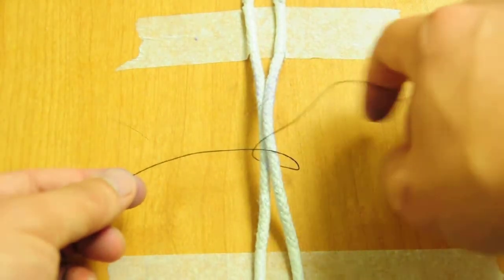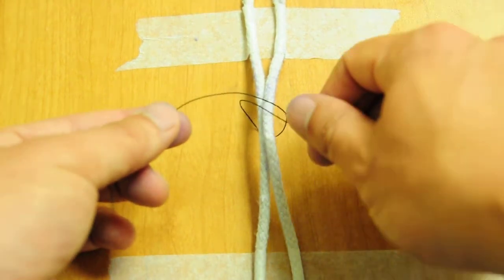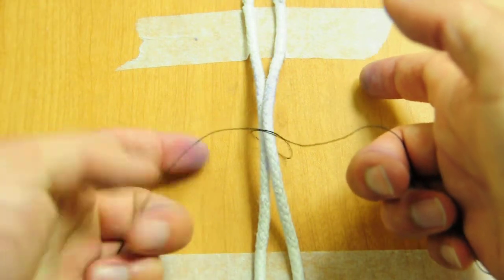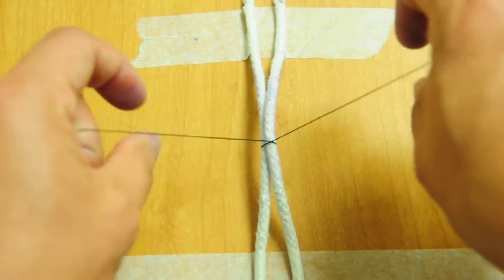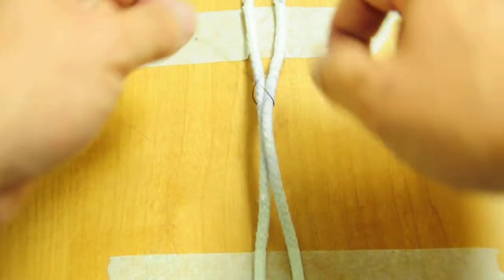Again, I'm going to do right-handed, two-handed ties. The suture is already crossing on the bottom, so I'll start out with the thumb throw. Holding the suture, use three fingers, and I'm going to use these two fingers to push above or below, depending on what the situation requires.